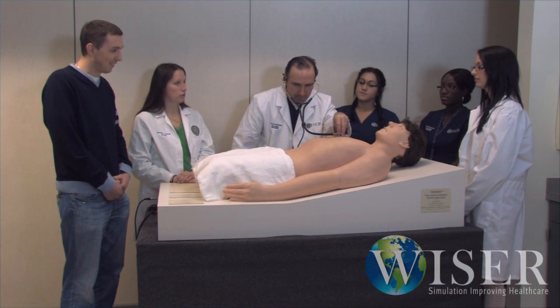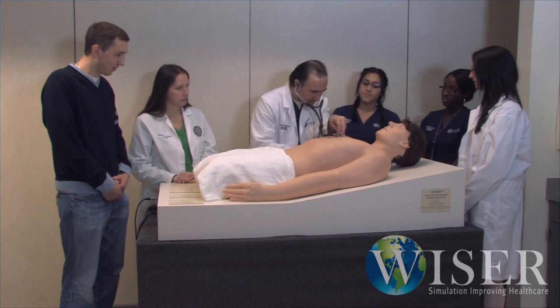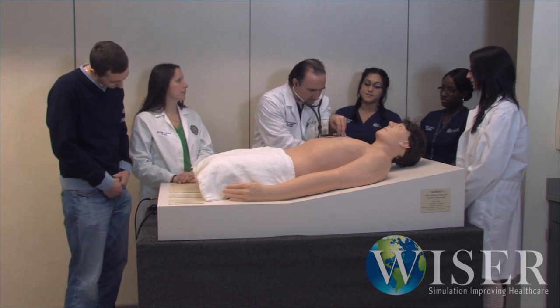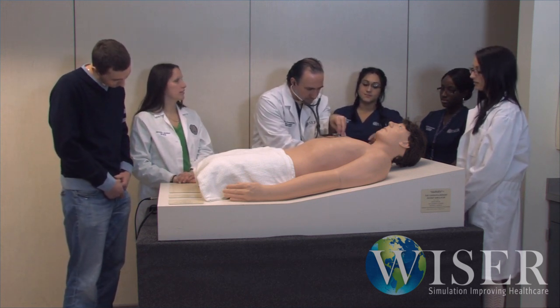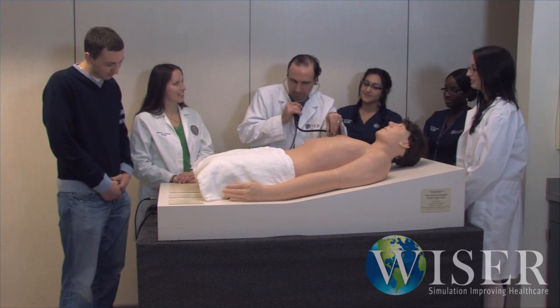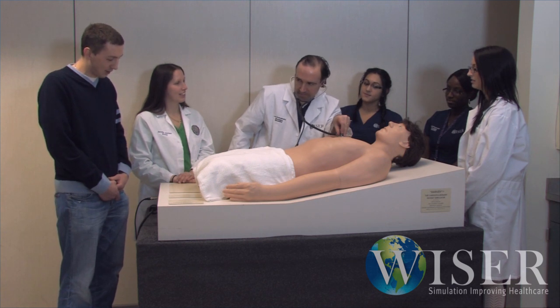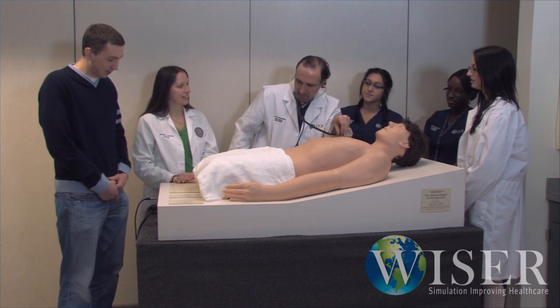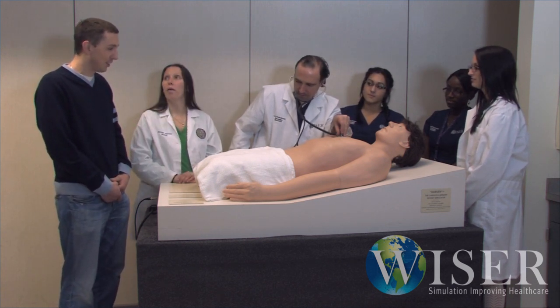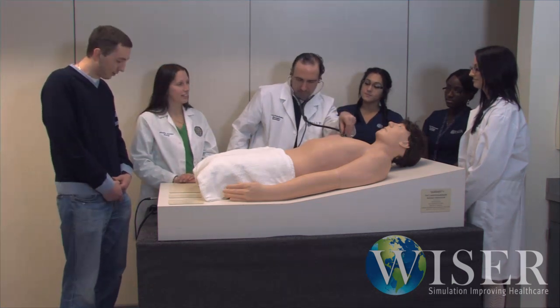Now you should have overhead sound coming from a PA system, such as we do here in Wiser's Medical Education Theater 8. This gives the instructor total control over how many students they want to include in the listening session and eliminates most obstacles. Hopefully this simple configuration can enhance the learning possibilities for your students.